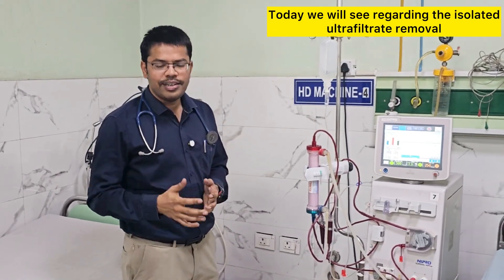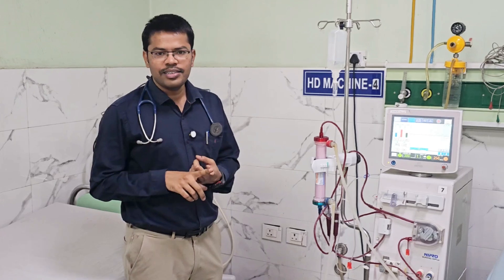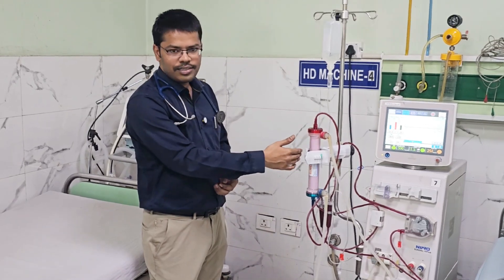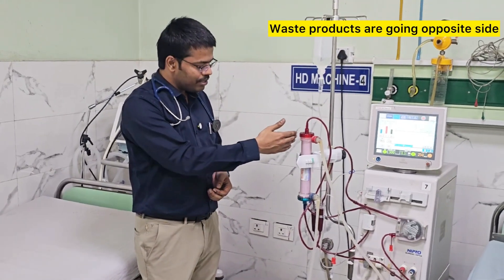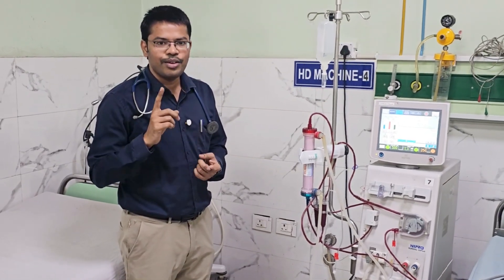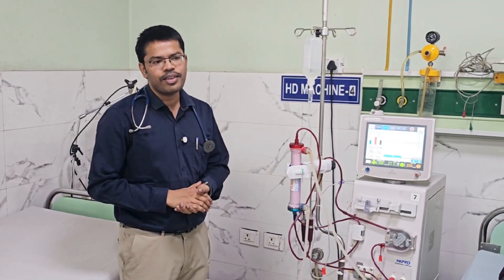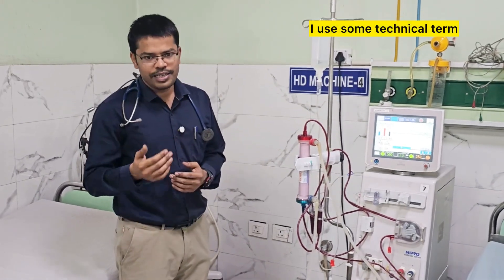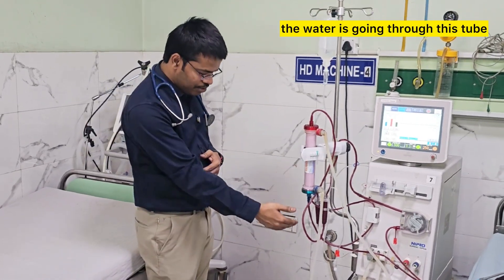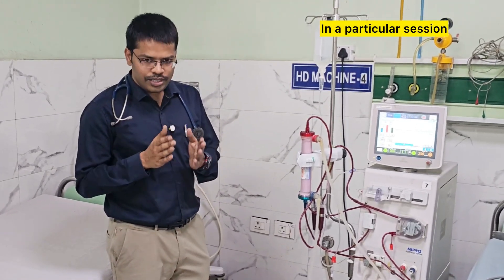Today we will see regarding isolated ultrafiltrate removal, or water removal. In hemodialysis as a whole, two processes are occurring. One is dialysis — diffusion and convection between the blood and the dialysate side — where waste products like urea and creatinine are removed and electrolytes are stabilized. The other process is water removal: the excessive water, or ultrafiltrate, is removed from the patient and goes through the tube to drainage.